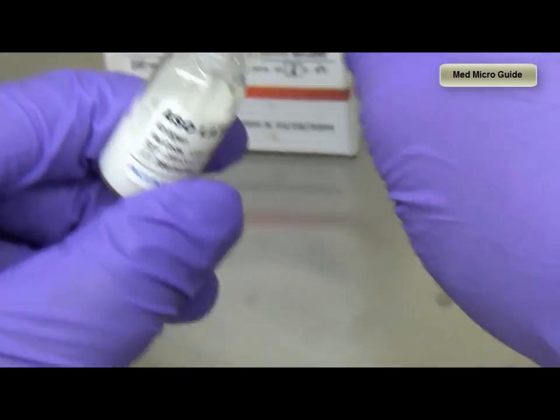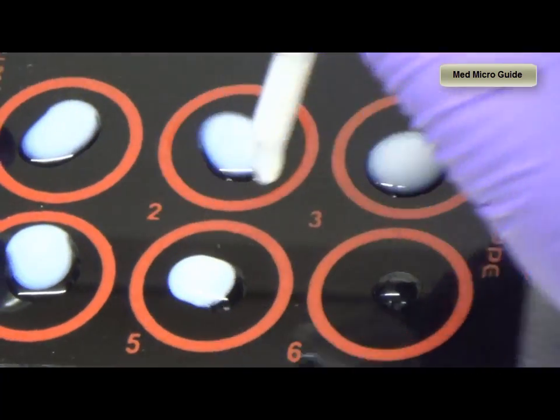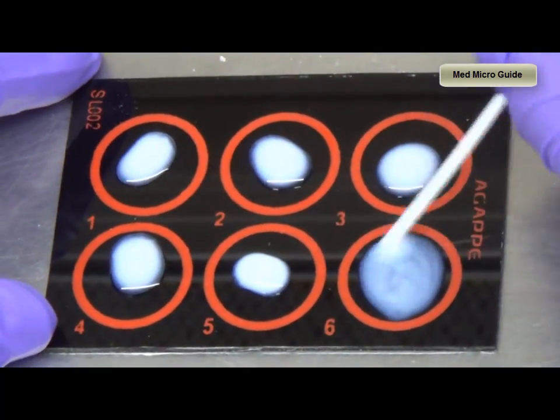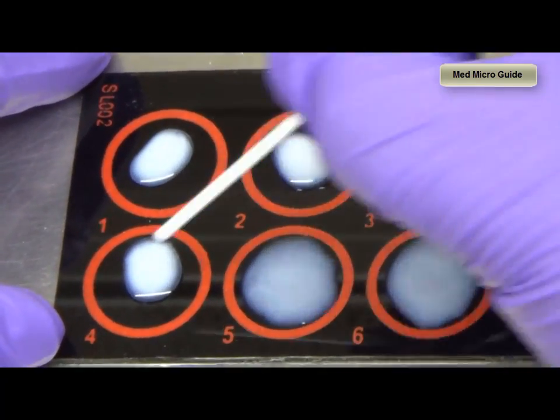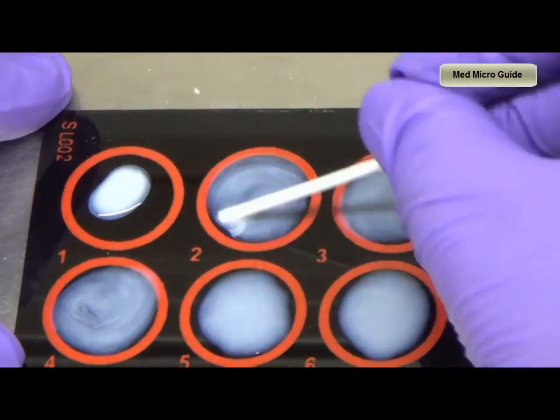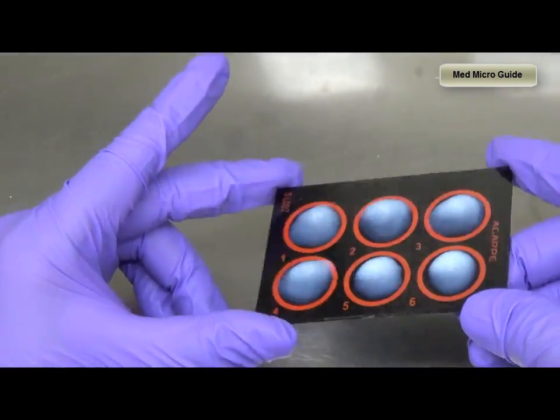After the dilution, we will add the ASO latex reagent — one drop to each of the serum dilutions. Once the ASO reagent is added to the diluted serum, we will mix the reagent and serum using an applicator stick. The serum has to be mixed starting from the highest dilution — that is, we start from 1 in 64, then continue with 1 in 32, 1 in 16, 1 in 8, 1 in 4, and 1 in 2. After mixing, we will gently rock the slide to and fro for 2 minutes.